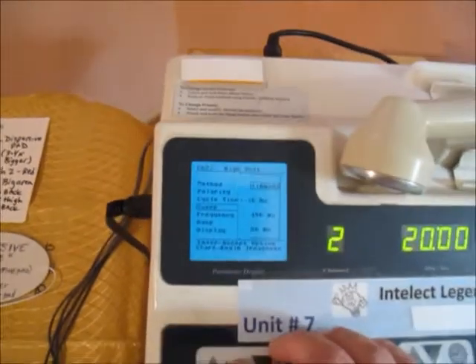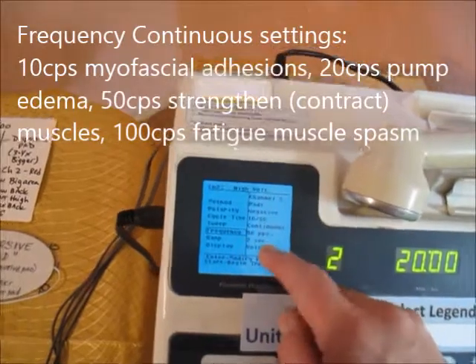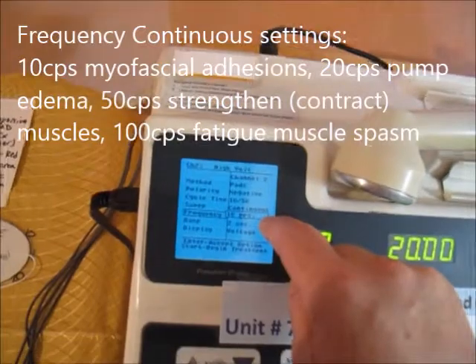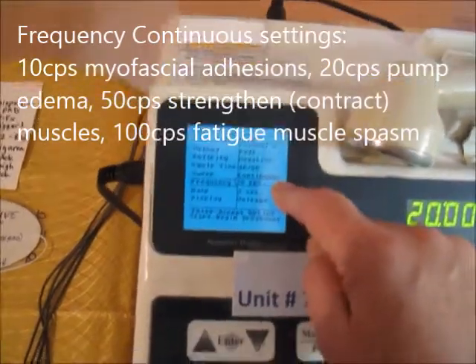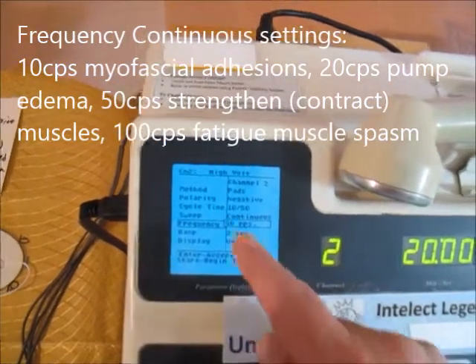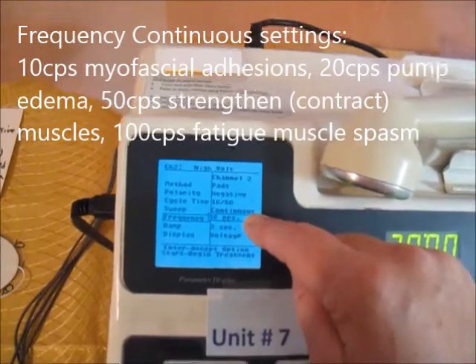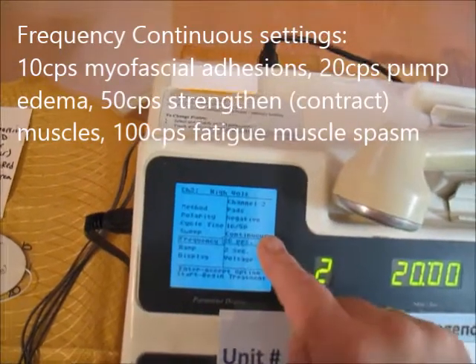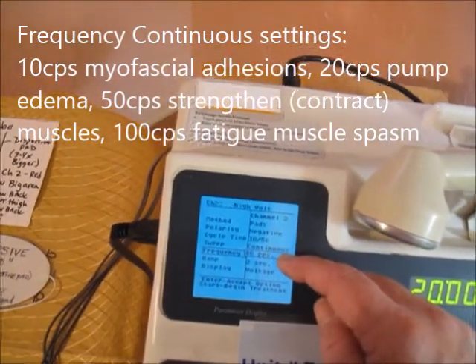Using the enter button and down arrow to set frequency: at 10 Hz you're doing myofascial adhesion breaking — that's called static. At 20 Hz you're doing pumping for edema — called intermittent. At 40 to 70 Hz, with 50 being a good choice, you're contracting the muscle. Above 80 Hz — ideally 80 to 120 Hz — is for fatiguing tetany to get rid of spasms.